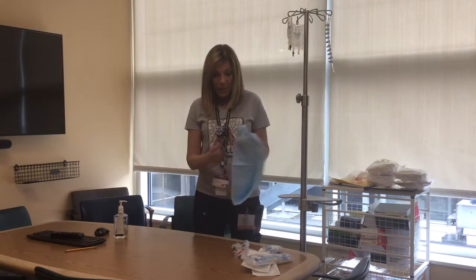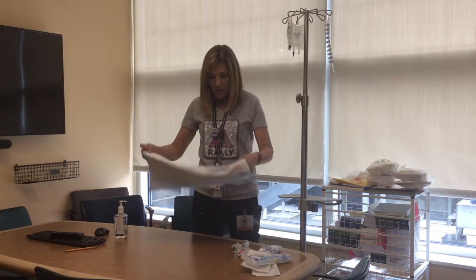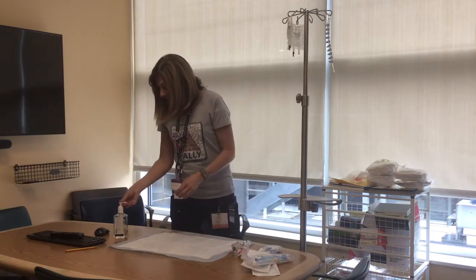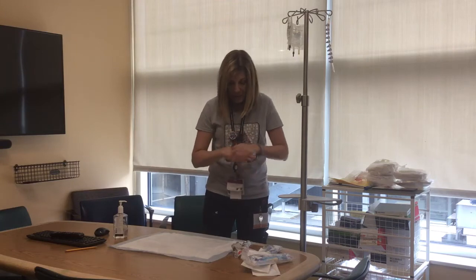To start off with, you wipe off your table with some Sani wipes, and then just get a clean chuck so you have a clean surface to put your supplies. Then do hand hygiene and put on some regular gloves.